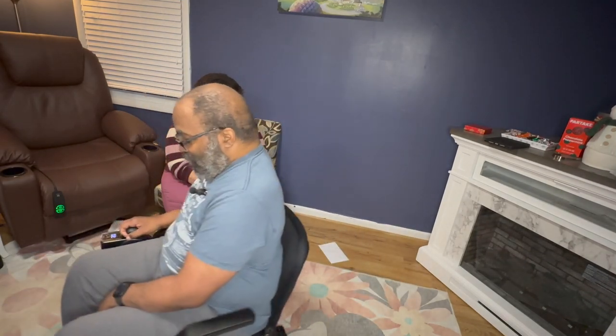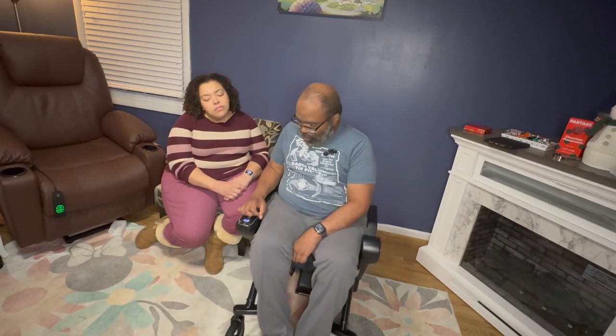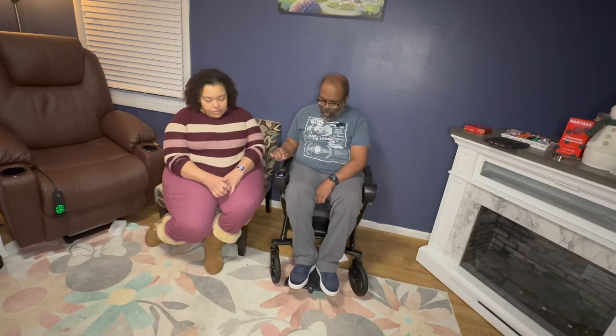The Model F does have a very quiet motor — not very loud at all. It is fairly powerful and quiet so far. First impressions: it's different than my Model CI. The other one is bigger and just more sturdy. This one is much lighter. That was the horn, which is kind of weak, but hey, it's a horn. It's very light — when Brooke took it out of the box earlier, she could lift it very easily and set it down. It is a very light frame.